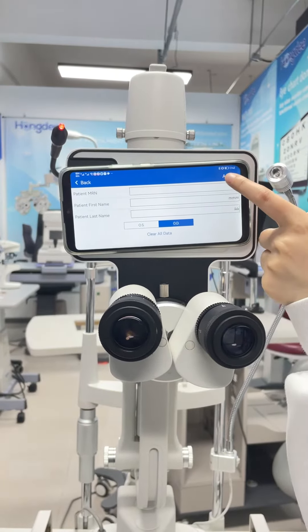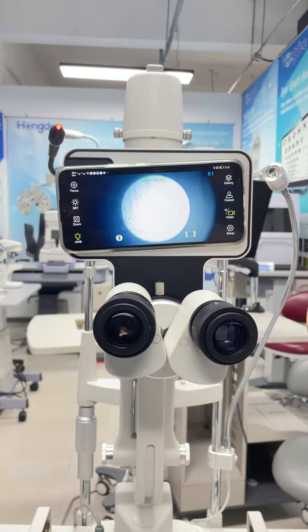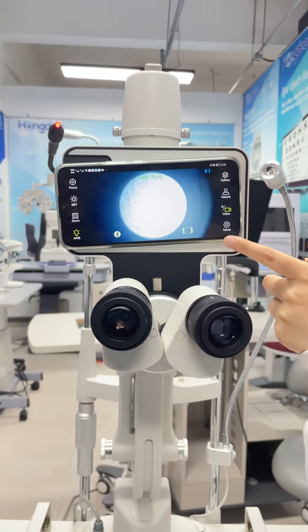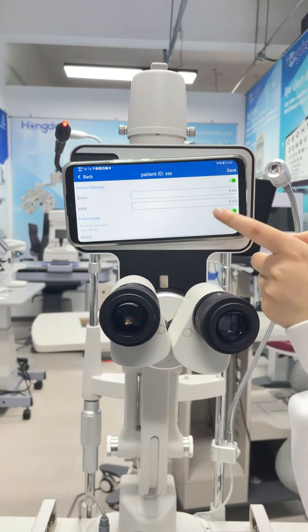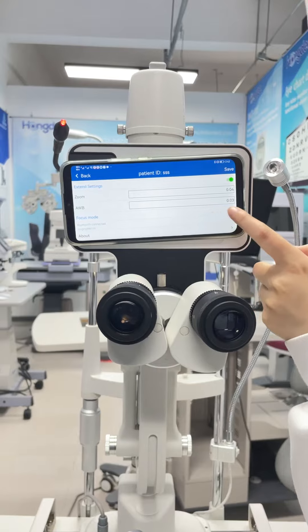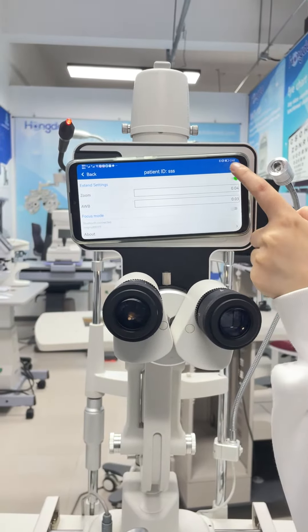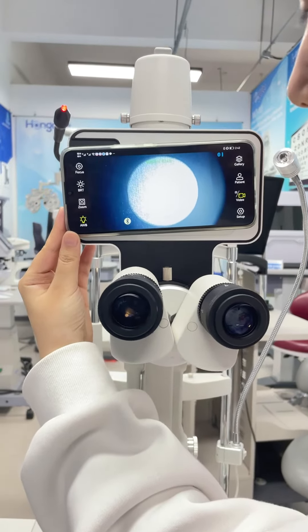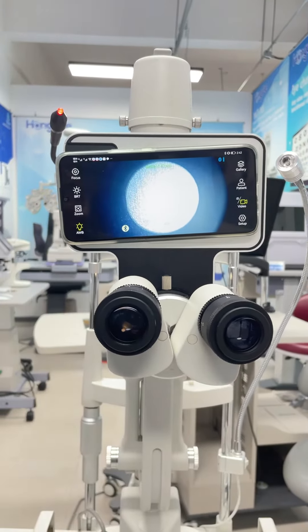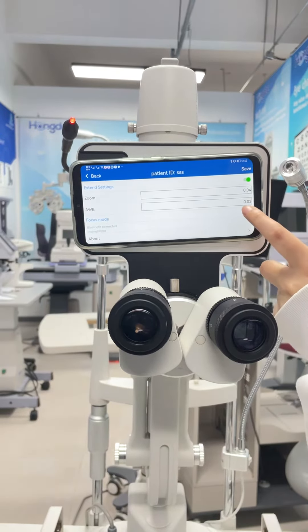Okay, and activate. Now we need to press the focus mode and turn on the focus mode. When you adjust and stay in focus, then turn off the focus mode.